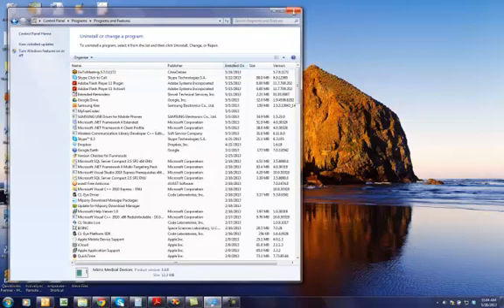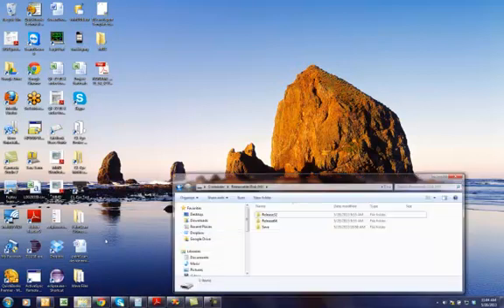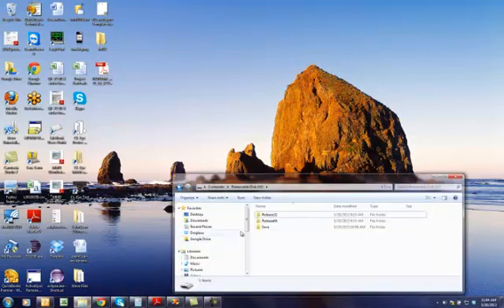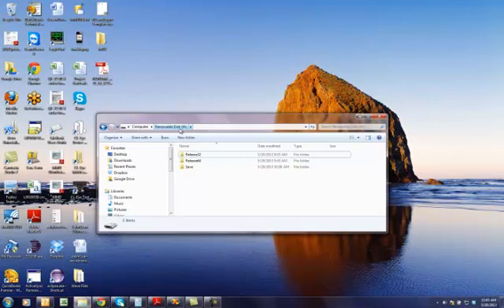Okay, the installation is done. Now that we know it is a 64-bit operating system, I am going to go to my H Drive, which is a USB stick on my system.